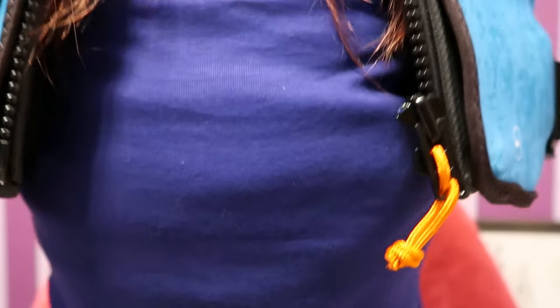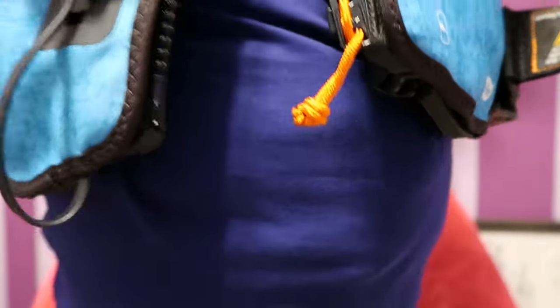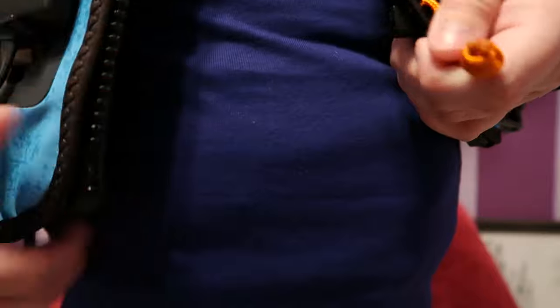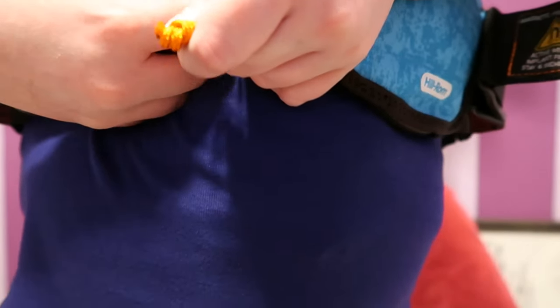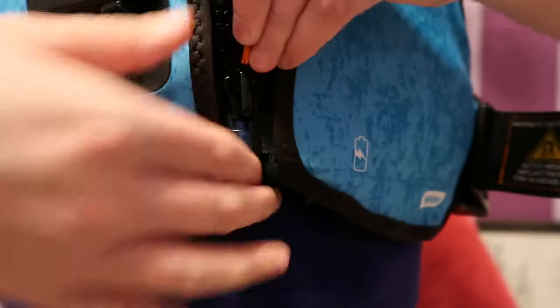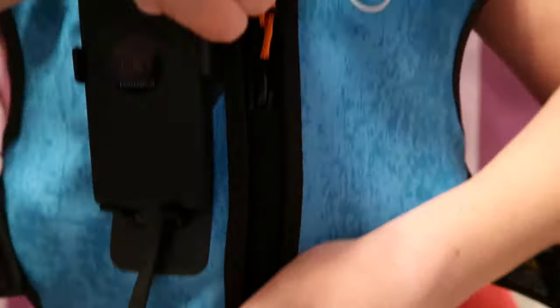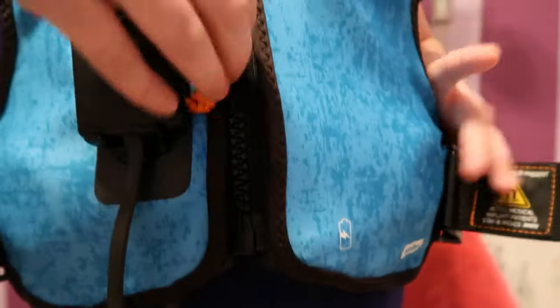I just got this today, which is Wednesday. You pull it together and then zip it up. I like that it's a zip and no more Velcro, because the Velcro ruins all my clothing.